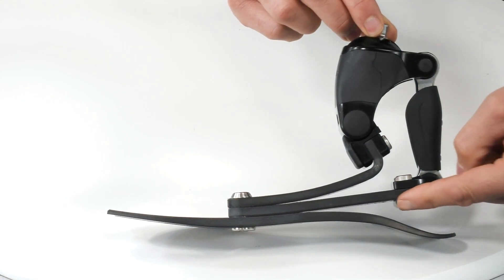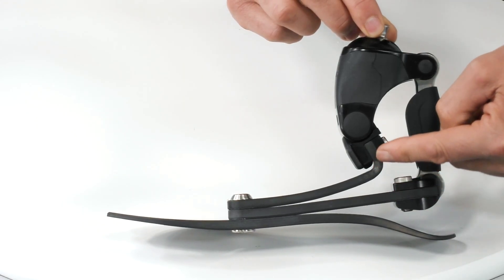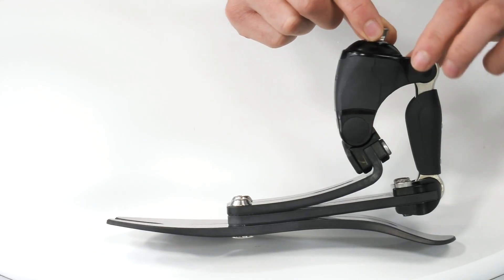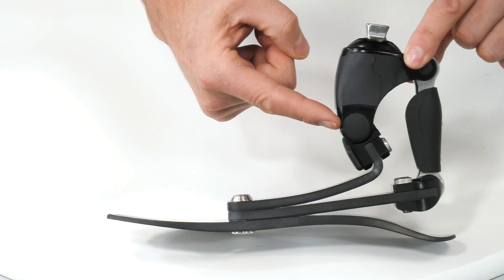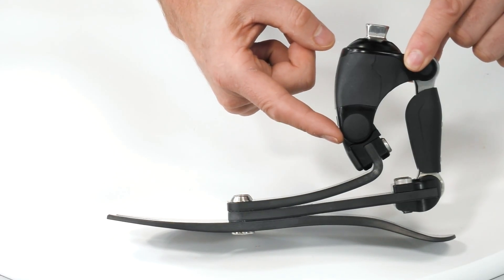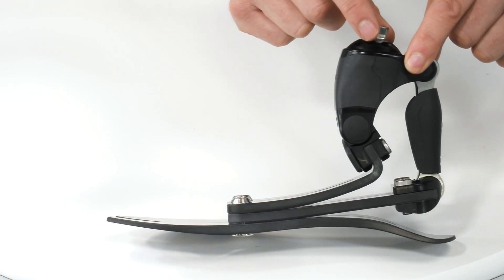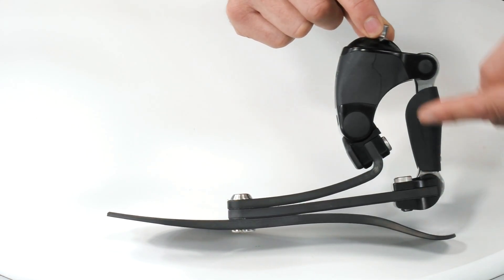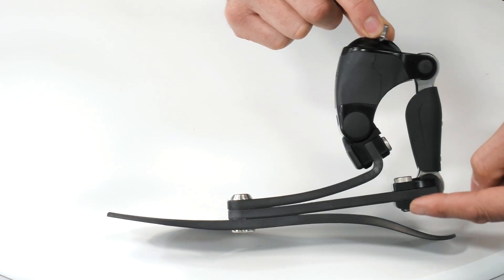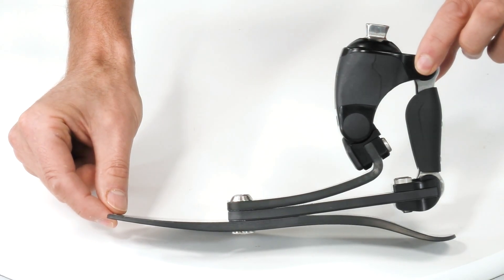When we start to look at the different blades, we come to the middle blade. We'll discuss more about this in a moment, but the top blade is connected to this pivot — and this is where the ProFlex Pivot name comes from. This area simulates the virtual physiological or anatomical point of rotation of the ankle joint, and it's the way the middle blade is connected to the top housing via this posterior link, and how this interacts with the other blades, that gives the foot its very dynamic behavior.